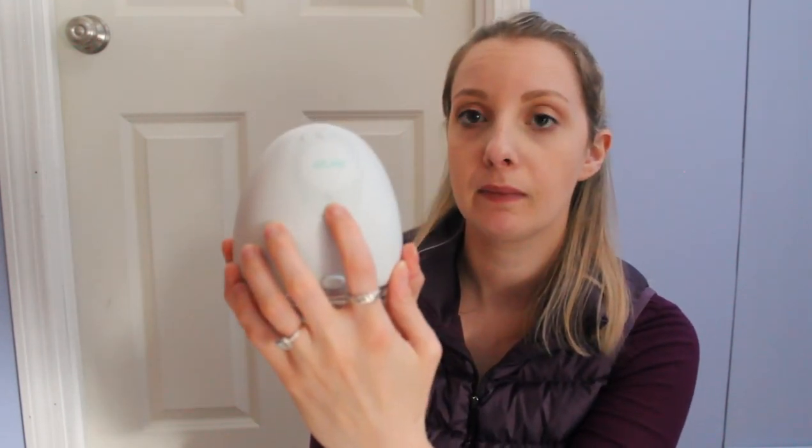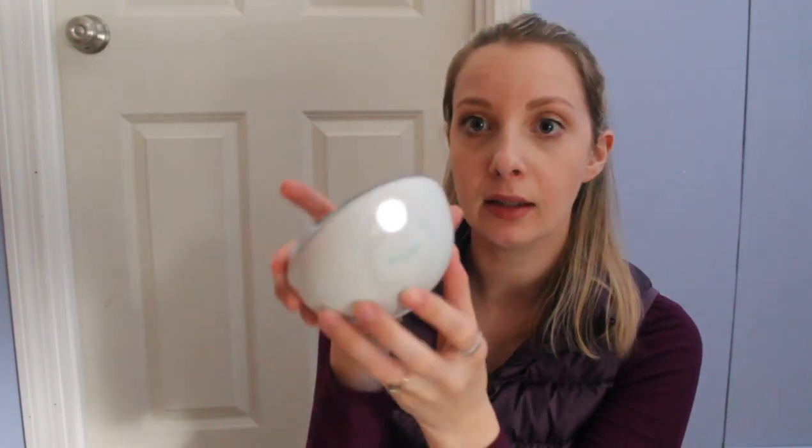Let's disconnect it now and see if it'll turn on so we can hear it. Oh, it has a little illuminated light. Oh my God — it's so quiet. I don't even feel like you guys can hear it. Do you hear that? I can see it moving. It's so quiet — I bet you guys totally can't even hear it.